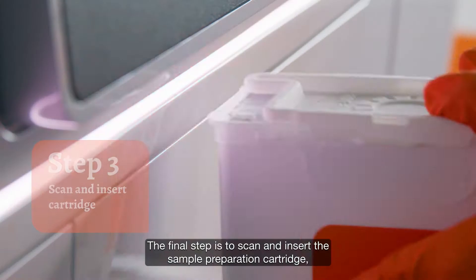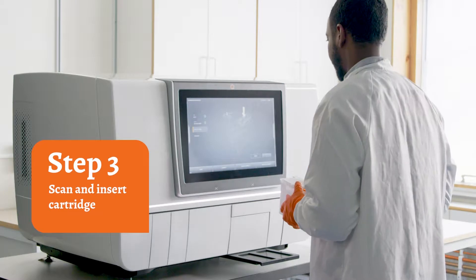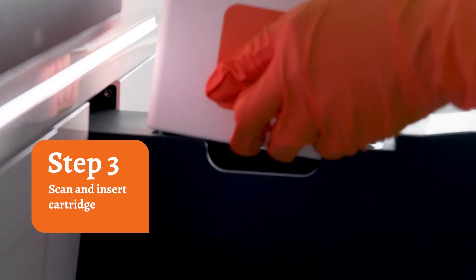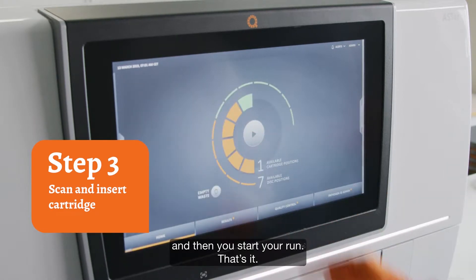The final step is to scan and insert the sample preparation cartridge. And then you start your run. That's it.